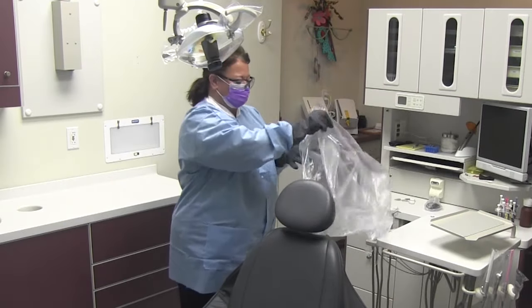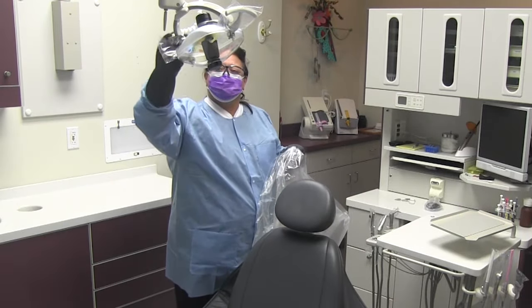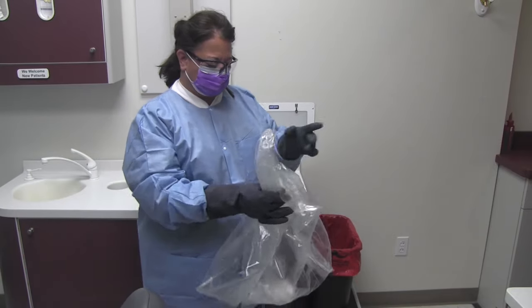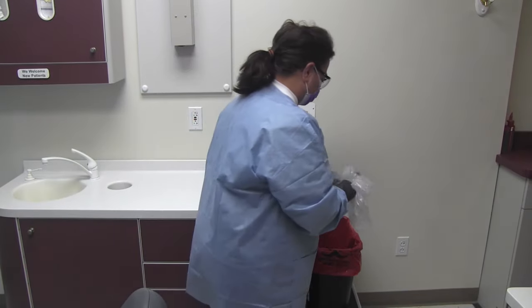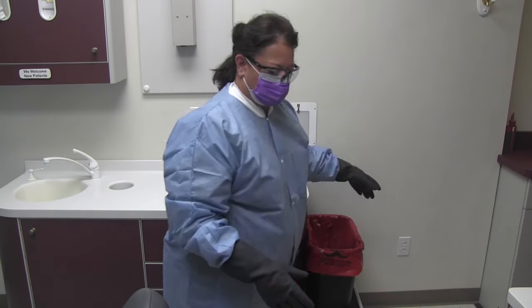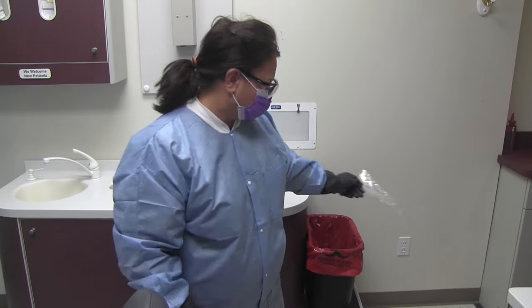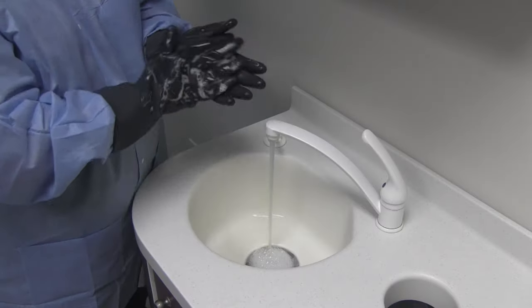When removing contaminated surface barriers, you should wear utility gloves. Do not touch the non-contaminated surfaces that the surface barrier covers. Discard the contaminated surface barriers in accordance with the disposal laws in your state.